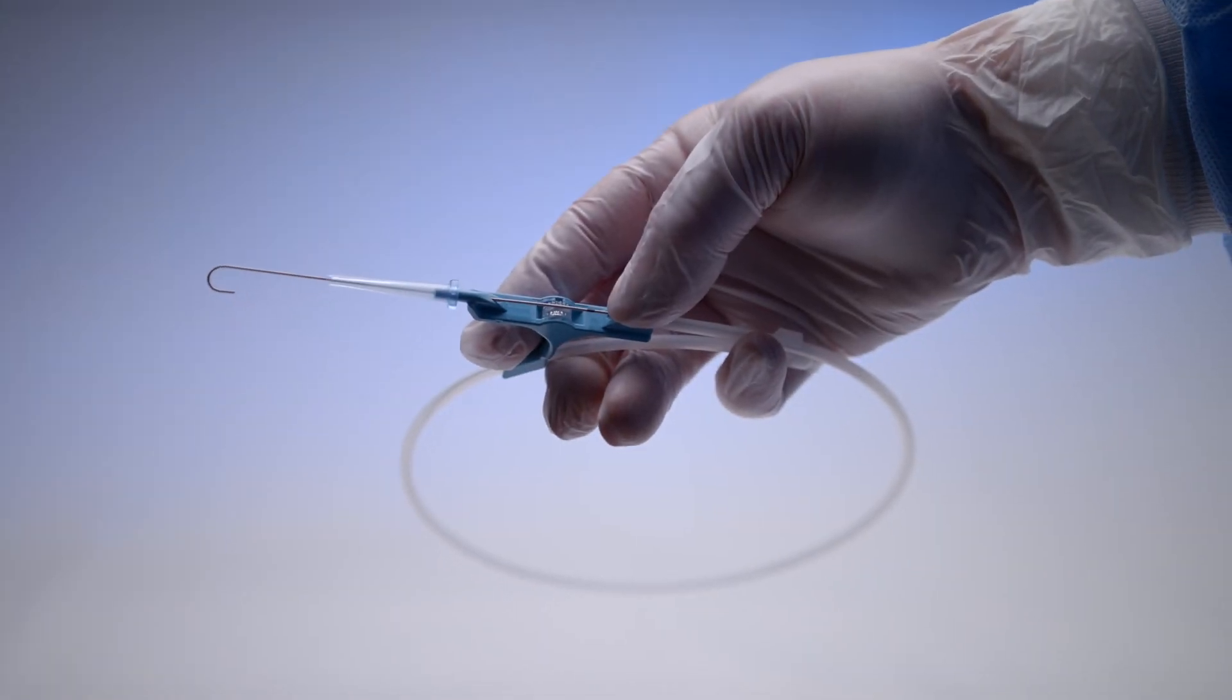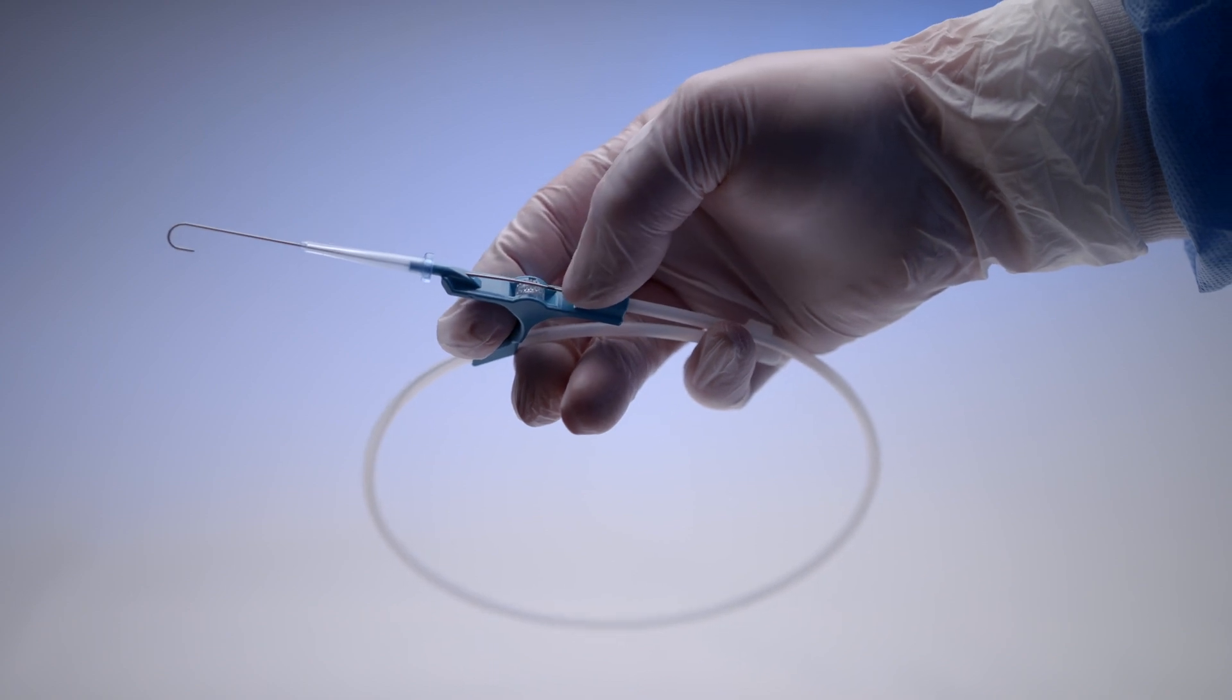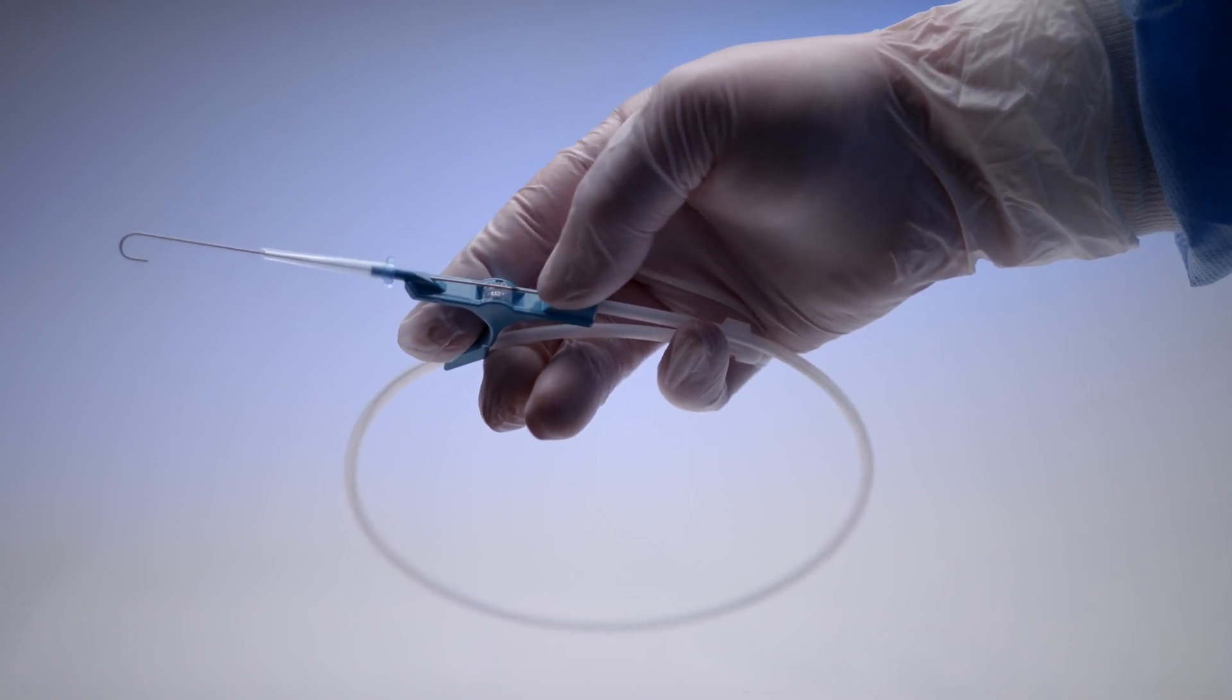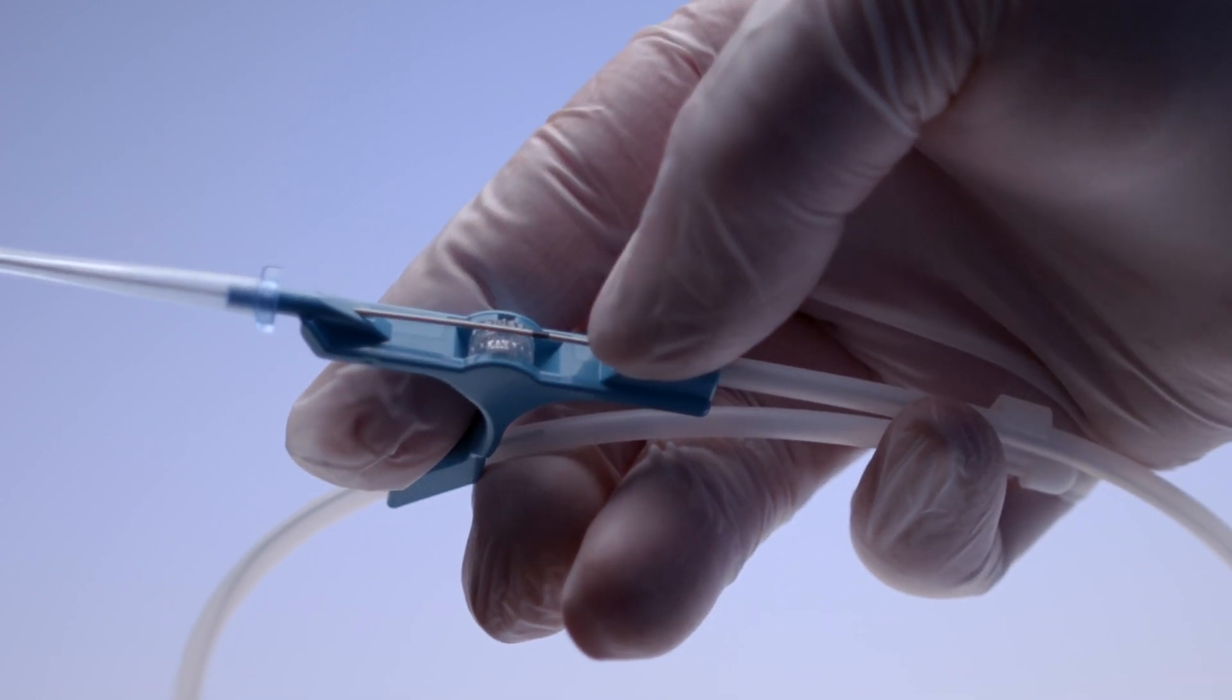And when it's combined with the Aero Glide Wheel Advancer, which is designed to provide tactile feedback, the result is enhanced control during insertion to reduce inadvertent wire movement.